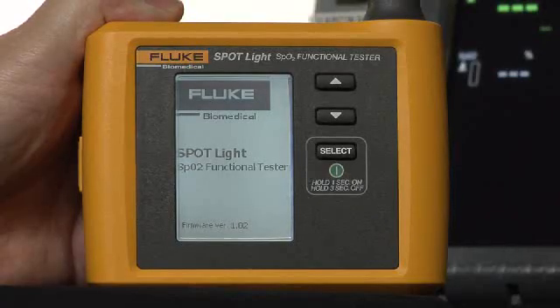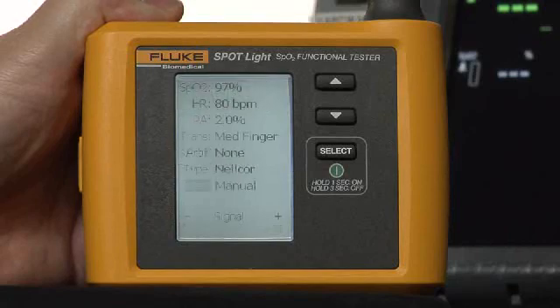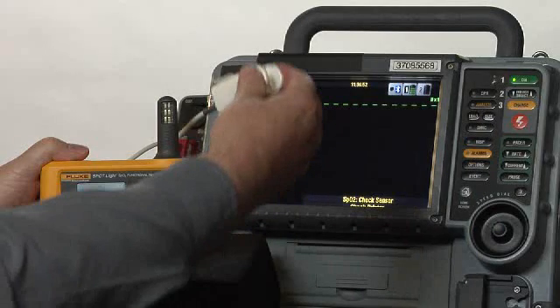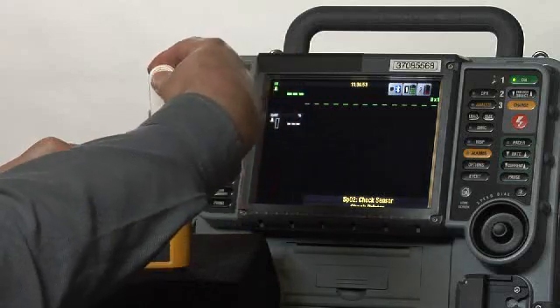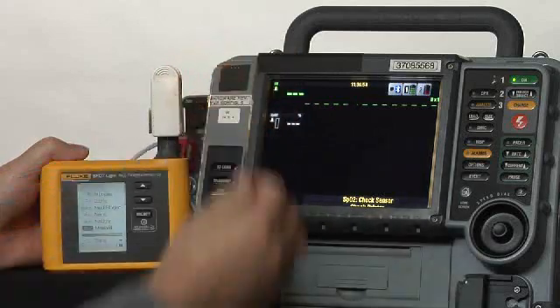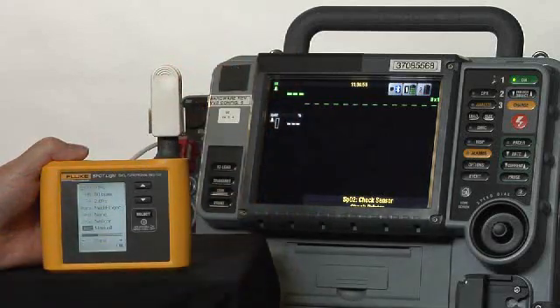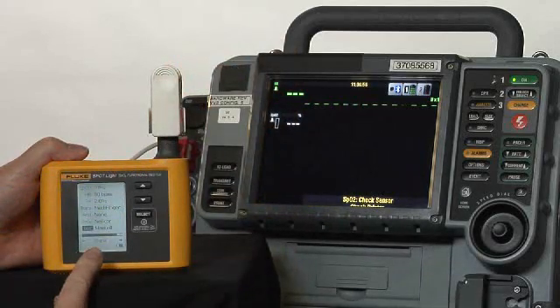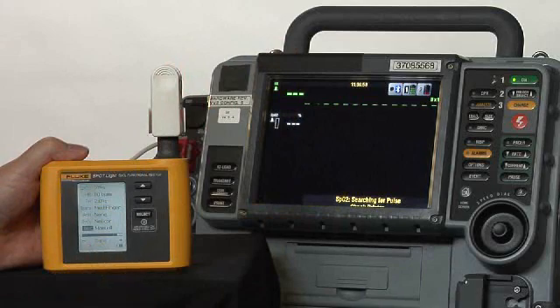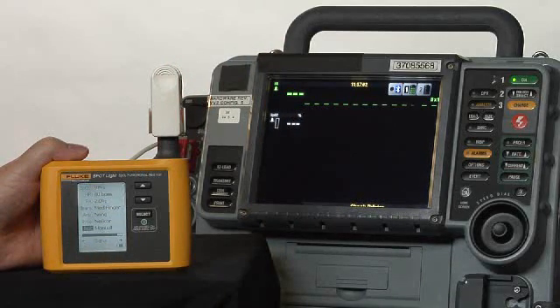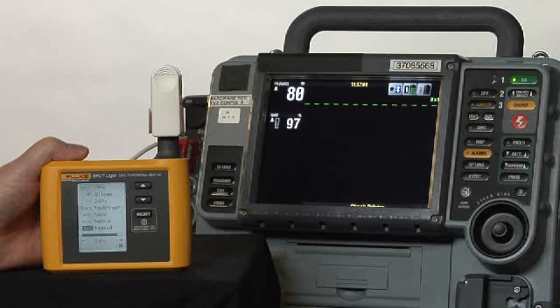We will then connect the oximeter sensor from the medical device, and we'll watch this bar down at the bottom. It's called the signal strength bar, and you can see that it has a good signal, and you will begin to see the display on the screen of the defibrillator.